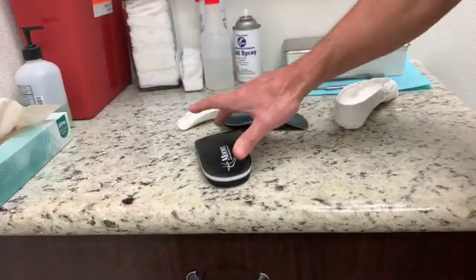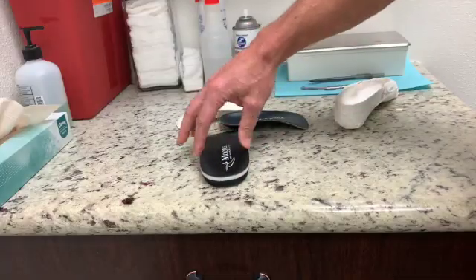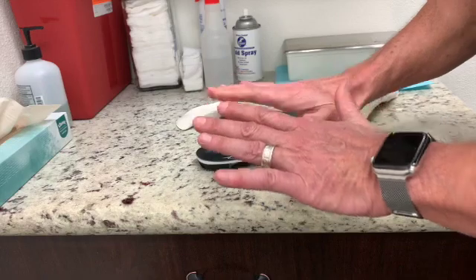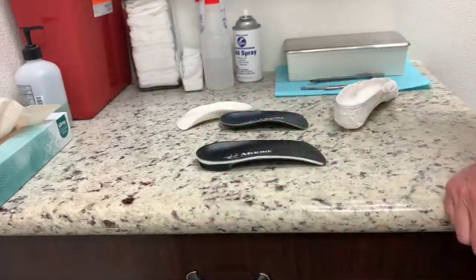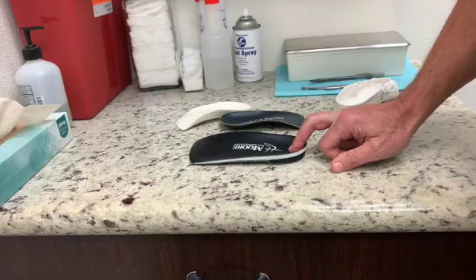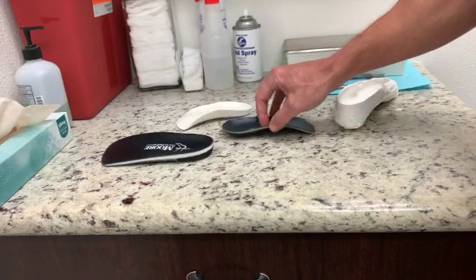If this is the arch and the left foot, the post stops the patient from pronating inwards. A heel post is really good for snow skis, inline skates — things where the patient has to have their foot flat sport-wise and not move around in the shoe or boot. They don't do poorly in other shoes, but for a certain type of tight cleats and things of that nature, it's a little bit bulky and we go to the tapered model.